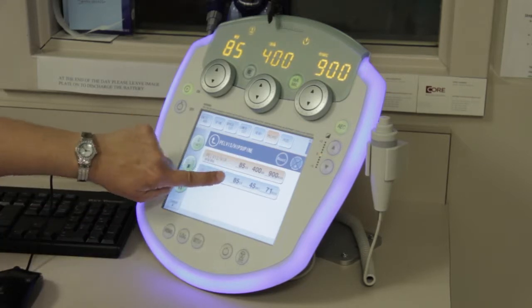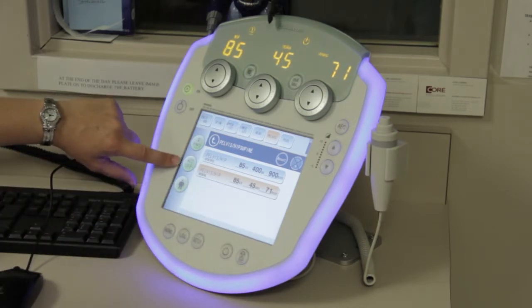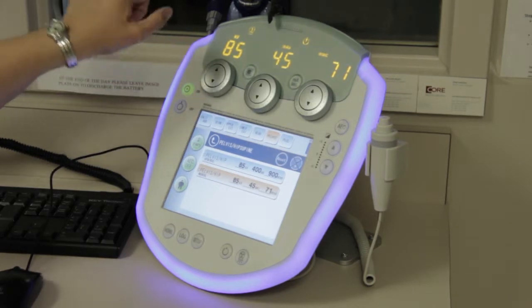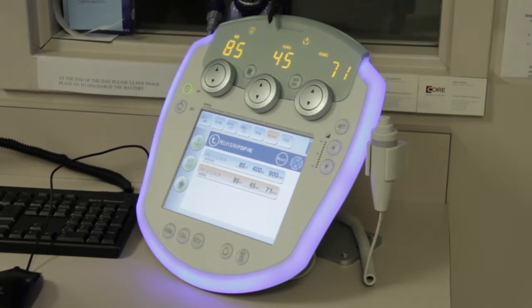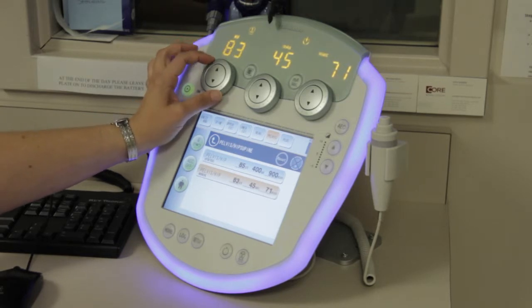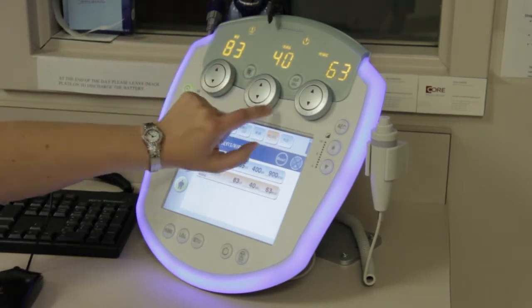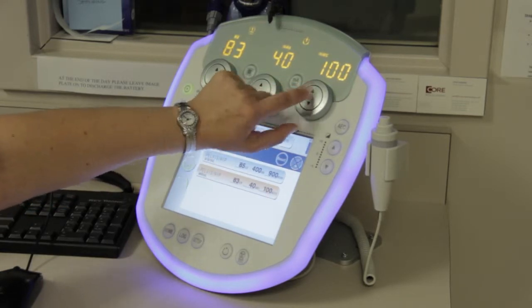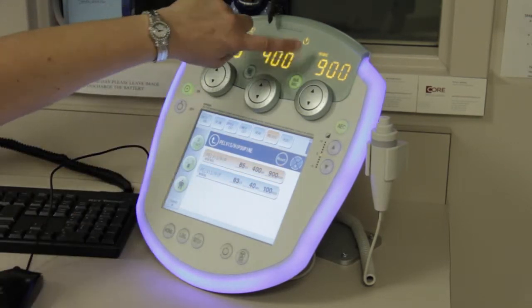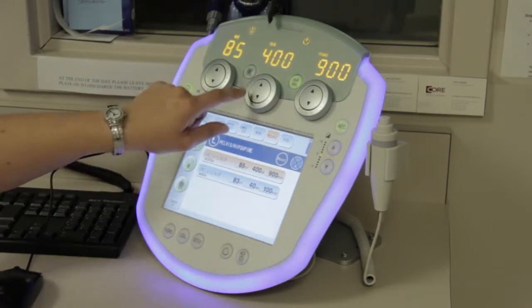If you do want to switch to a manual technique, I can select that one underneath. Now this one is orange — this is the one I have selected. My AEC is off, and up here I am now in what we call MAS mode, so rather than MA and time, it's giving me my total MAS. To change any of these parameters I've got dials here — the outer edges of the dials will do small changes, the inner arrows will do bigger changes. The same is true for all the dials and time as well. On a photo-timed technique it goes back into MA and time mode.